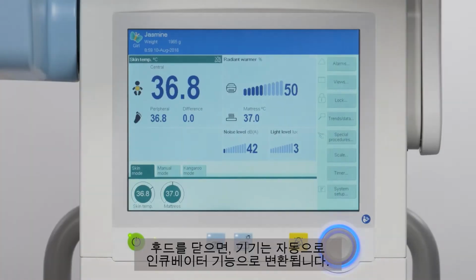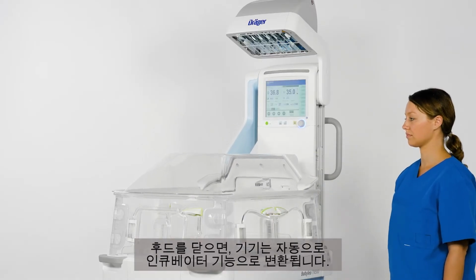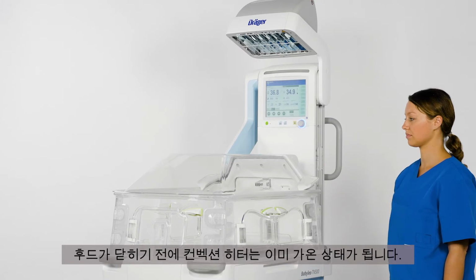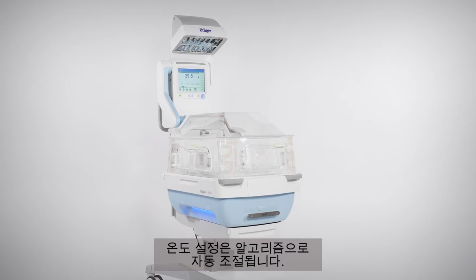As soon as the hood is closed, the device switches automatically to incubator operation. The convection heater is already preheated before the hood is closed. The temperature settings will be automatically adjusted by means of an algorithm.